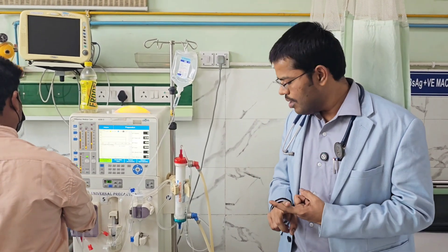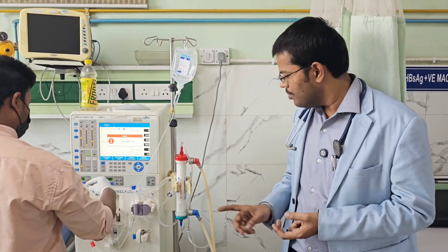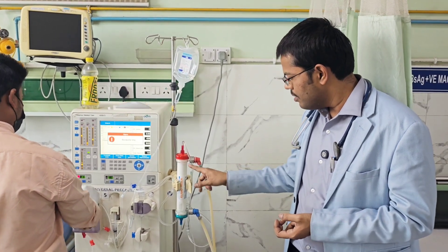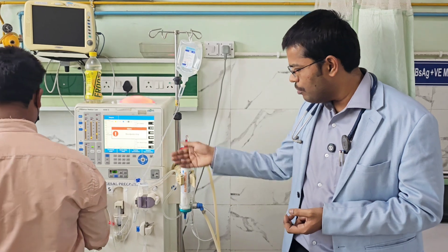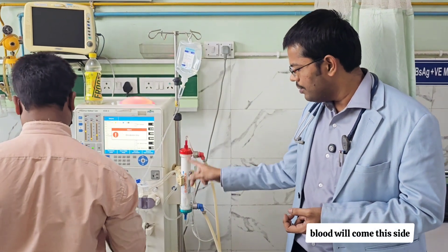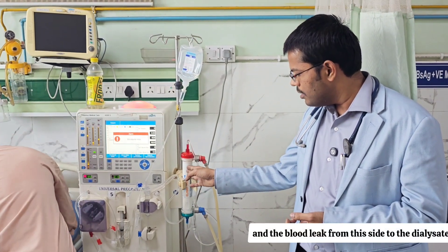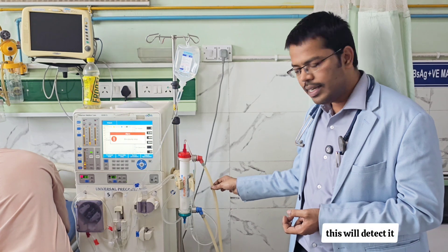The second dialysate circuit alarm is the blood leak alarm. The blood is on one side of the dialyser, and if blood leaks from the blood side to the dialysate side, a detector will detect it and the alarm will ring.